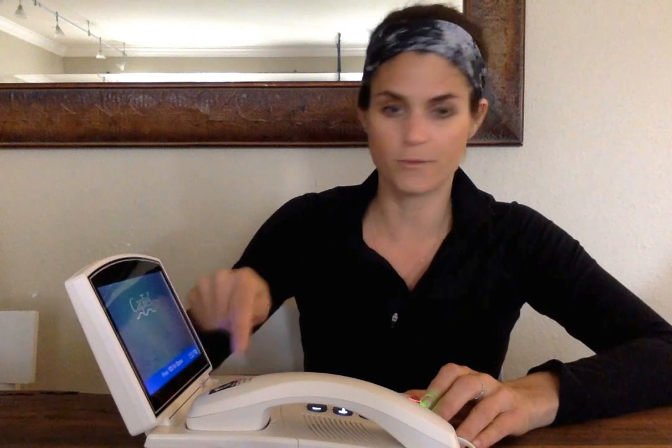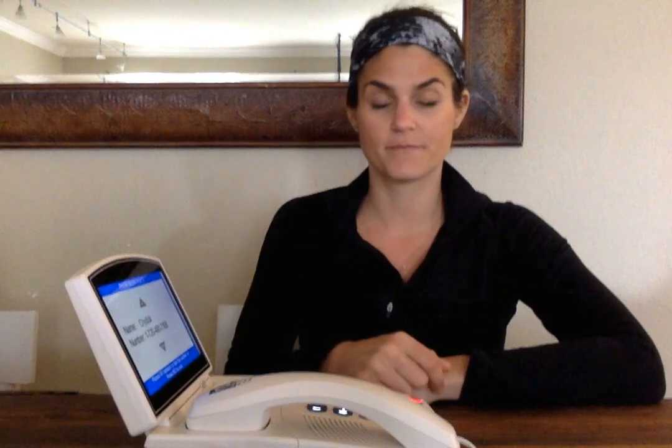If I wanted to ever dial from this phone, from my phone book, all I would have to do, I'm going to exit completely out of this so you can see. Once you're on your main screen, you've pressed no, you've exited all the way out, you're on your main screen, and it says press yes for options. All you're going to do if you want to use your phone book is hit yes, yes. Okay? By hitting yes, yes, you're hitting yes to options, yes to dial from phone book, because that is the first option that comes up.